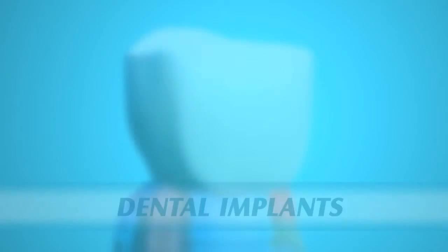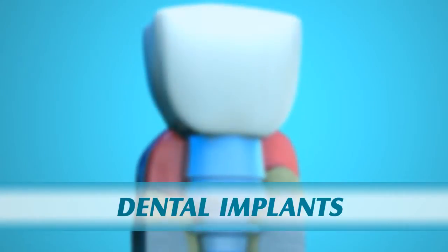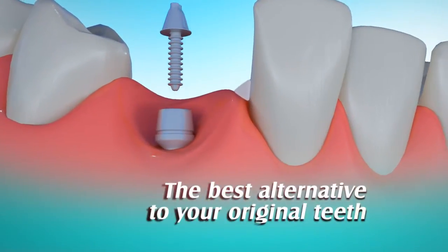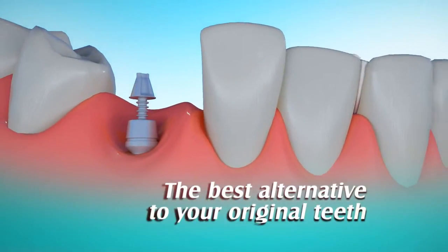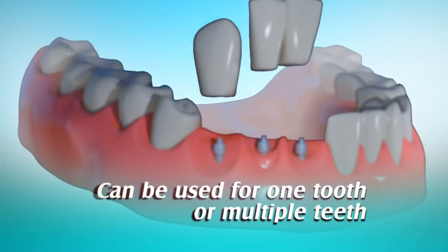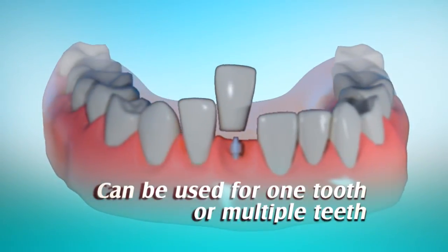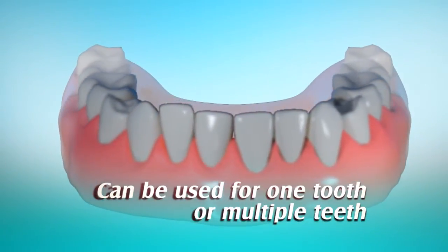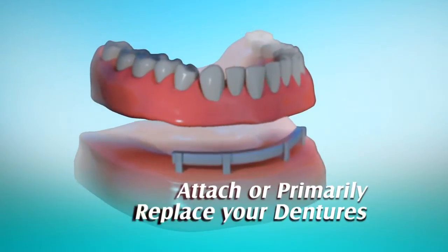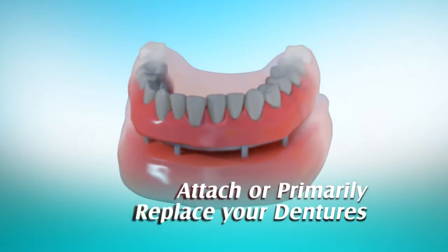A dental implant is a substitute for missing teeth, and in many ways they are the best alternative to your original teeth. Dental implants can be used for one tooth or multiple teeth. They can also be used to attach your dentures or primarily replace your dentures.